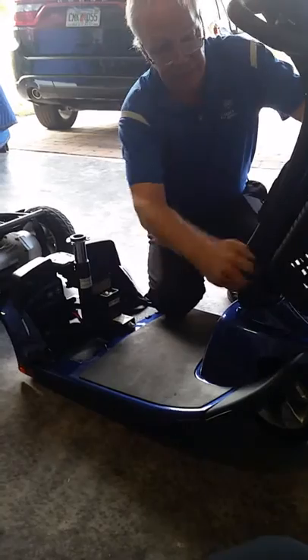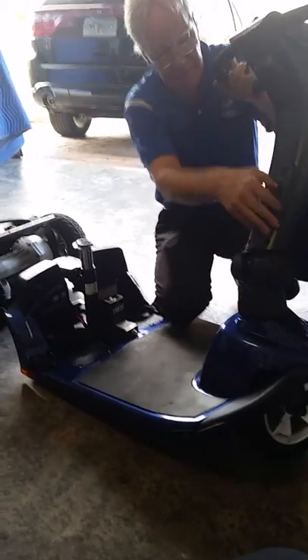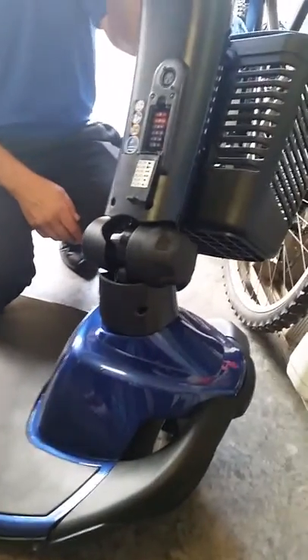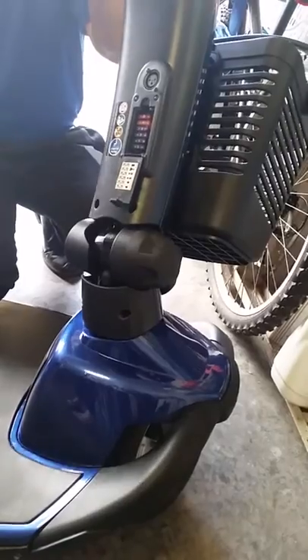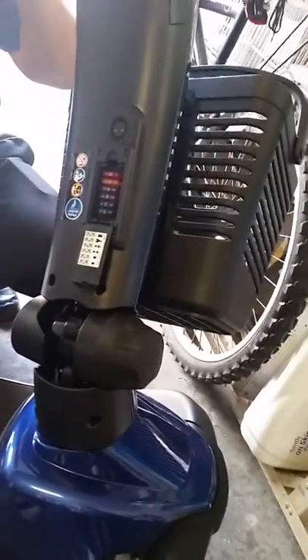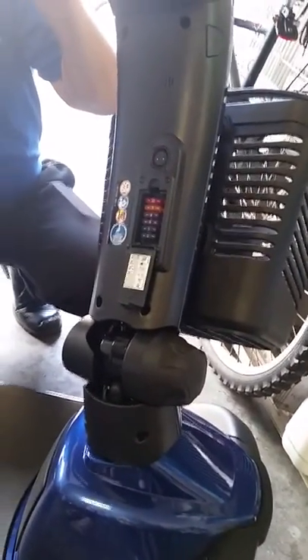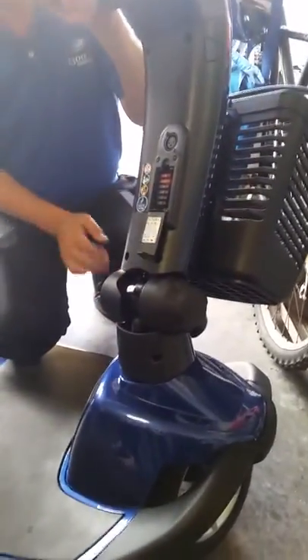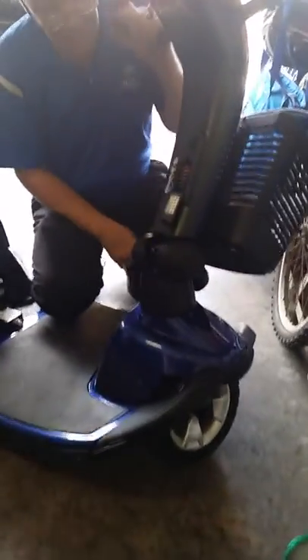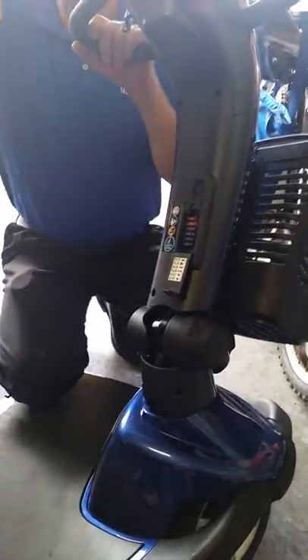Go forward a second — something easier for you guys to see. This is your secret trap door. See all those fuses? One's for the charger, to protect the charger from a line surge in Florida. There's the key switch, the headlights, the blinker, and the battery indicator. That's where you plug it in to charge. These are standard car fuses — if one blows, it's not going to work, you just pull it out and look at it. It breaks off, it burns off.